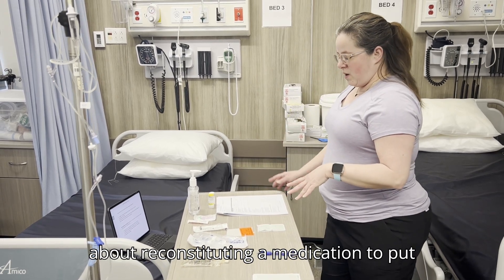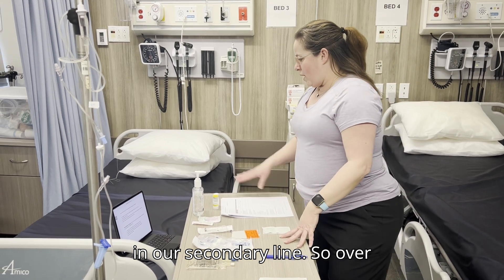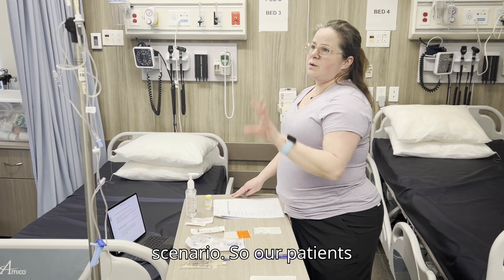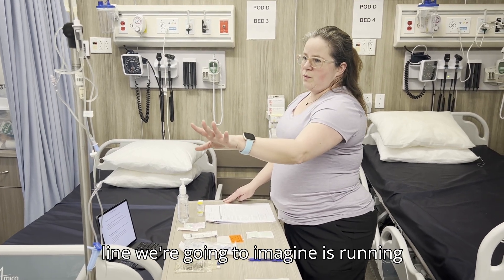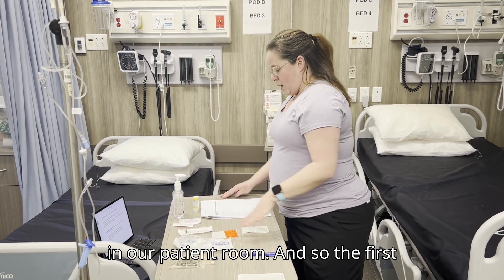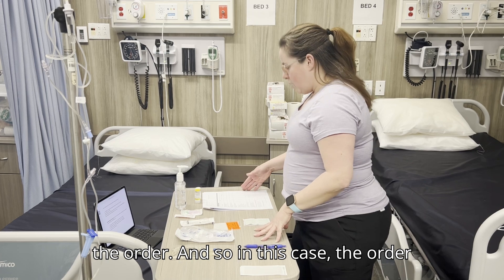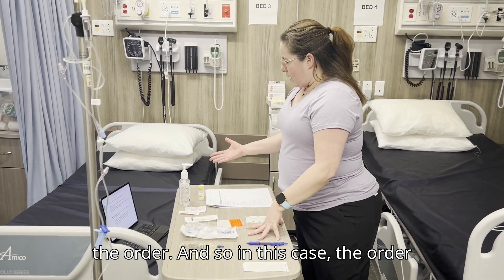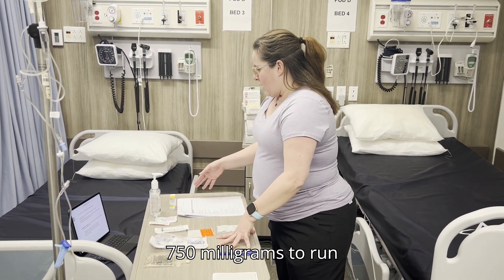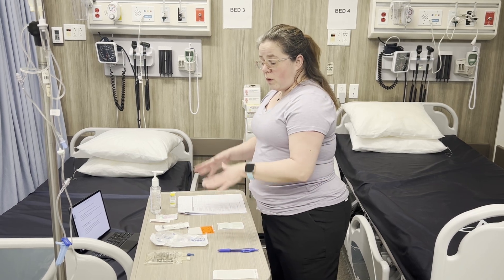We're going to talk about reconstituting a medication to put in our secondary line. On the iPad I have a little scenario — our patient's line is running in the patient room. The first thing we're going to do is take a look at the order. In this case, the doctor has ordered Cefazolin 750 milligrams to run over half an hour.